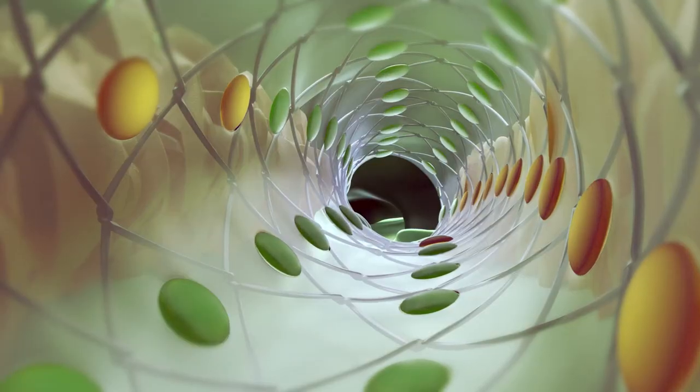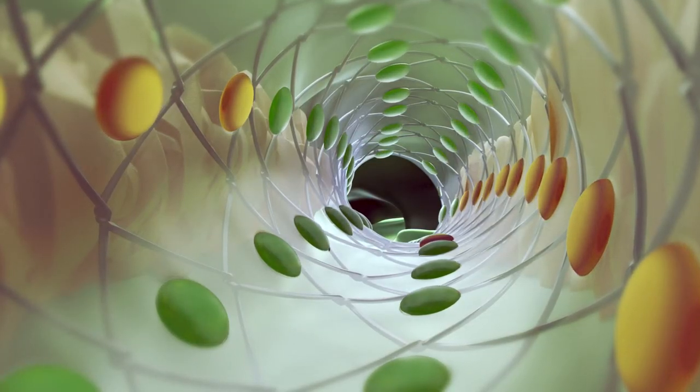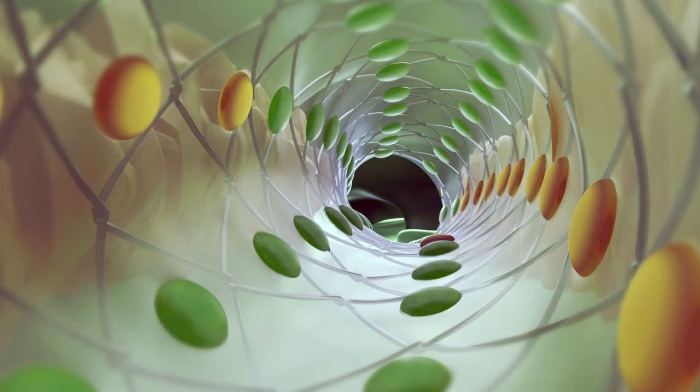Multiple holes cause micro-ingrowth, acting as an anchor to reduce stent migration rate.